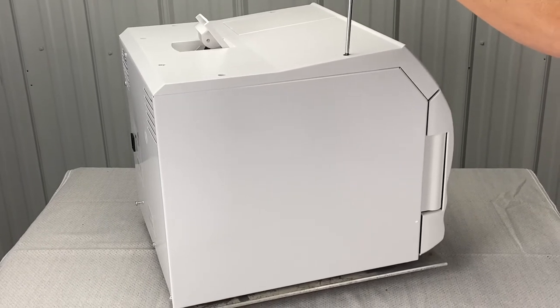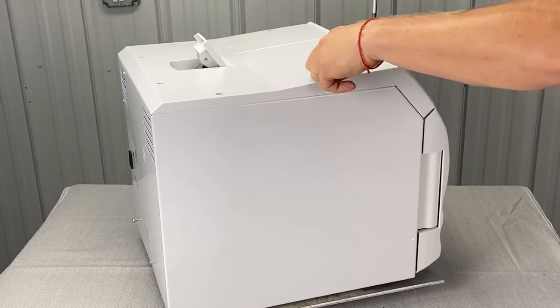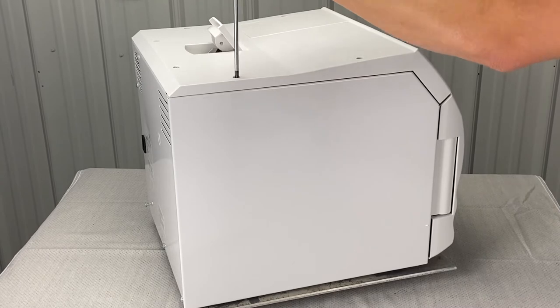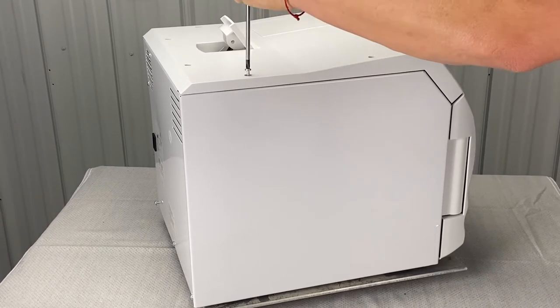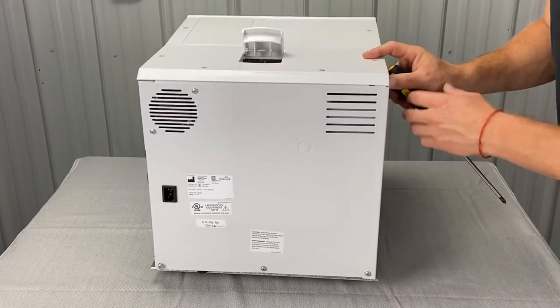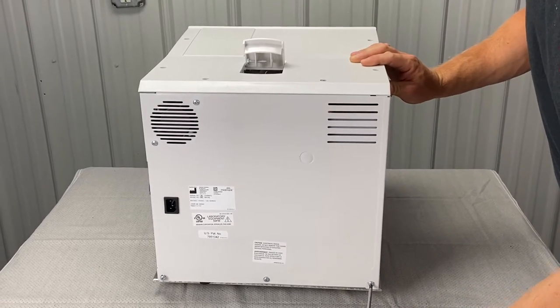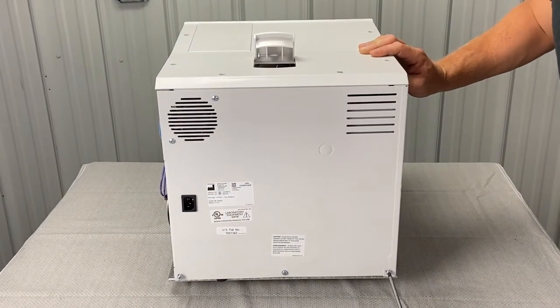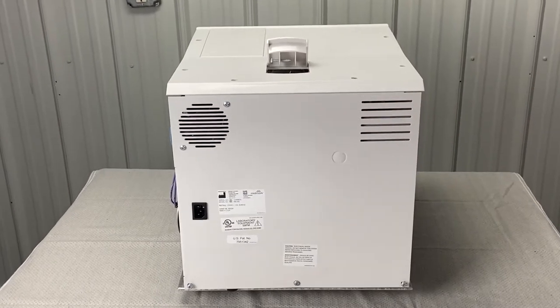You've got a screw up in the front here. Save them — don't throw them out. Right side panel, again this one has one in the back also. This one might fall as well. You can do this in either order, honestly. Loosen that one up, grab this with both hands, pull it here, and put it to the side.